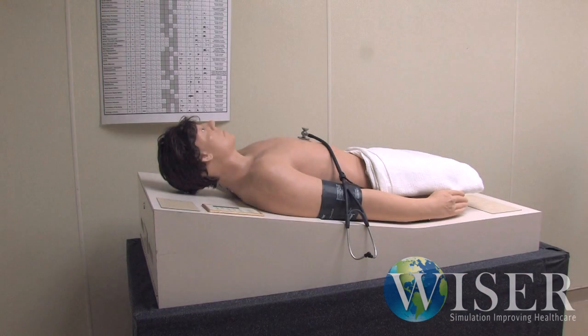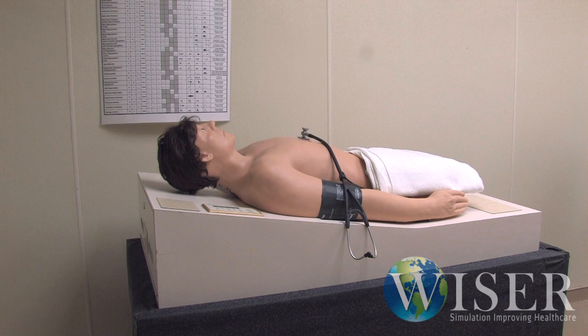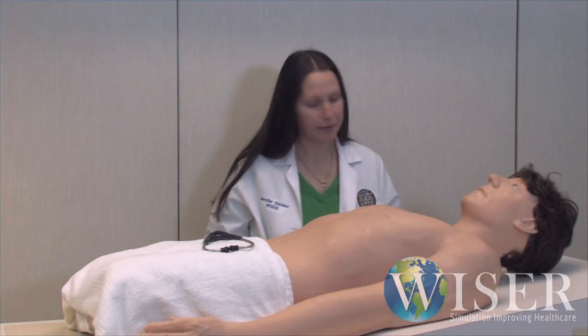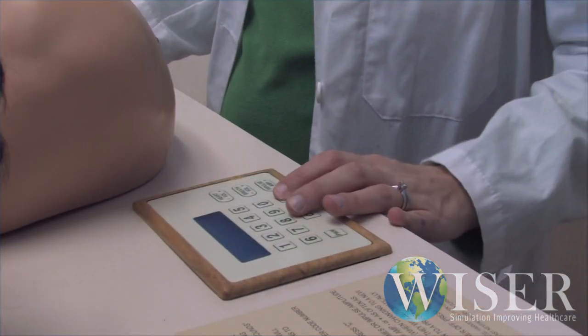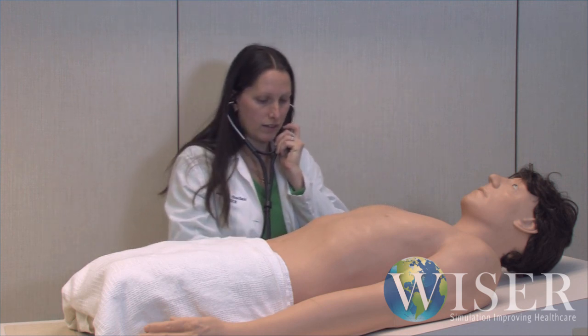For anyone that already owns a Harvey Cardiopulmonary Patient Simulator, you may not be aware of some of the different ways that the simulator can be utilized to enhance your ability to teach bedside cardiac assessment skills. The most likely way to utilize Harvey is to listen through the lone stethoscope that is attached to him, giving a single learner the opportunity to take note of the different cardiac states.